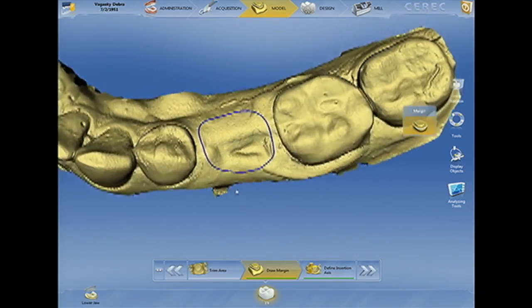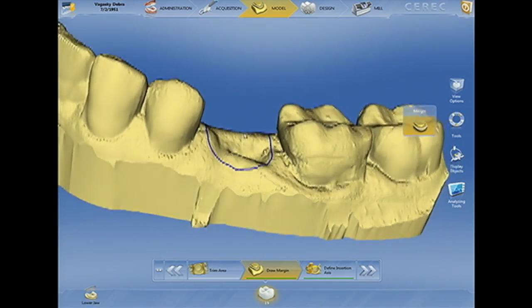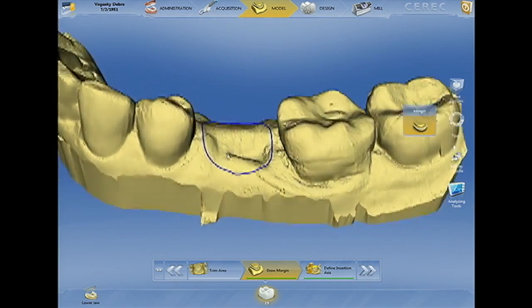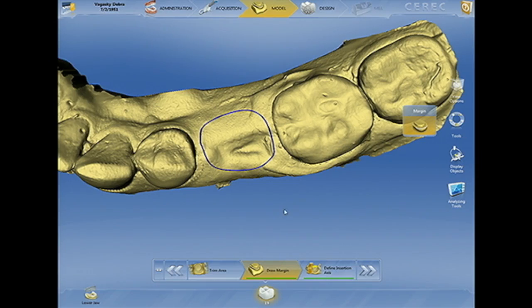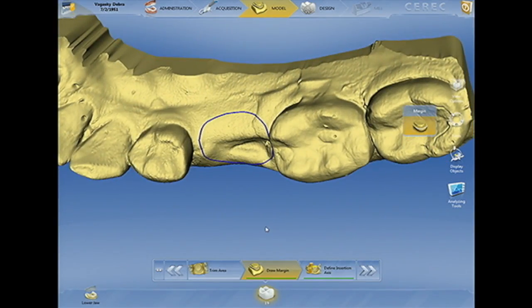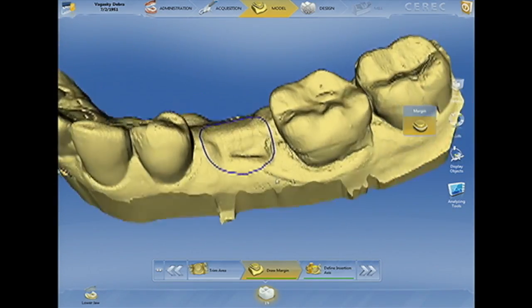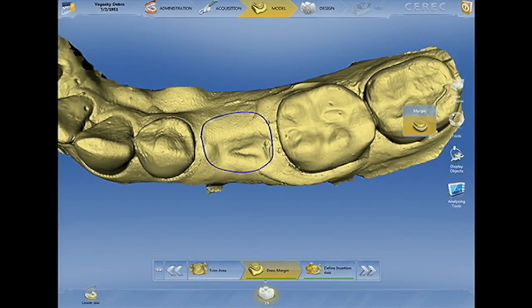When we're drawing a margin, we certainly don't have a prosthetic margin to consider. So we have to freehand a margin on the model, and that's readily done by double-clicking on the model and then using the space bar to release the automatic margin-finding tool, essentially drawing an outline form for a tooth that we're planning on proposing.